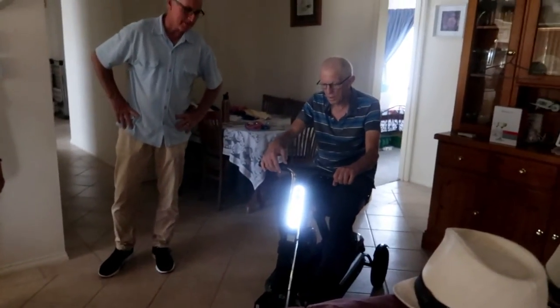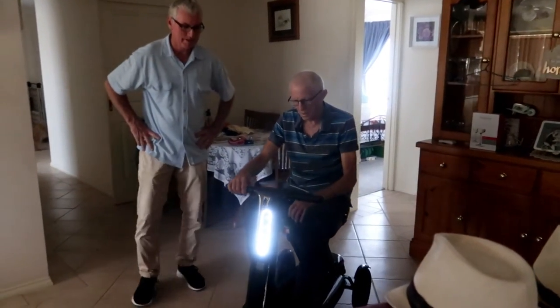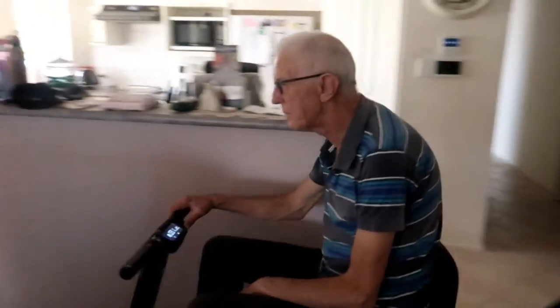It's still in reverse — just touch it once. Yeah, there you go. Well, here we go, a bit of warmup.